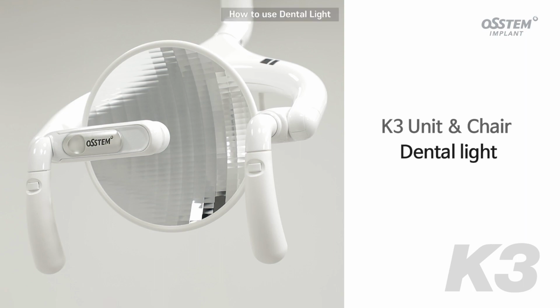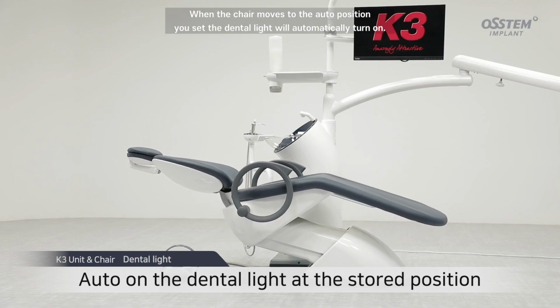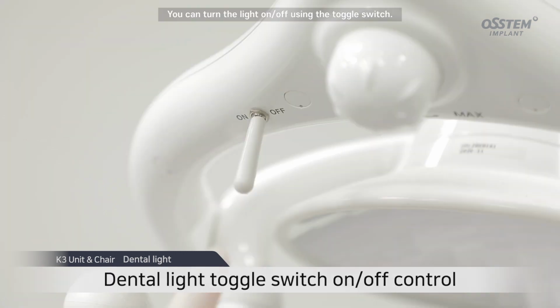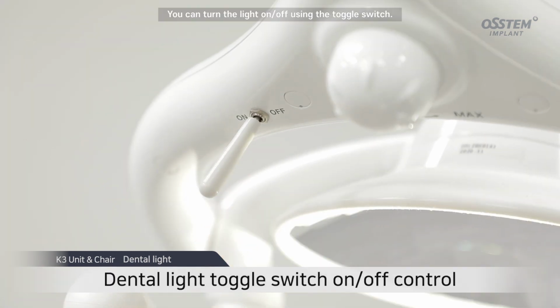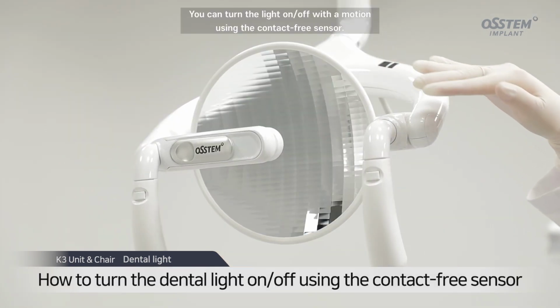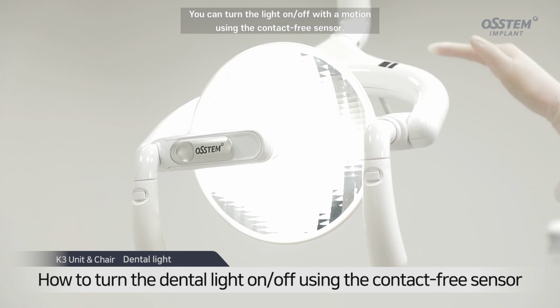How to use the dental light. When the chair moves to the auto position you set, the dental light will automatically turn on. You can turn the light on and off using the toggle switch. You can also turn the light on and off with a motion using the contact-free sensor.